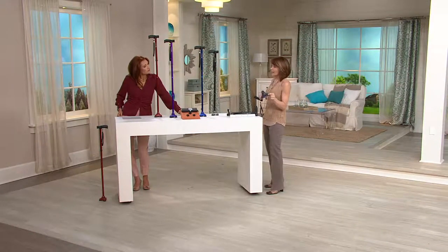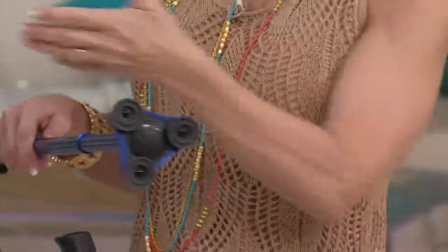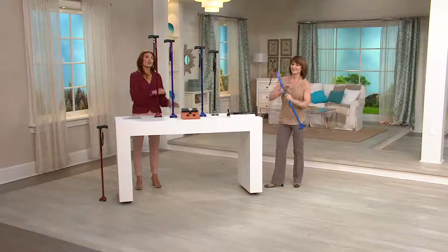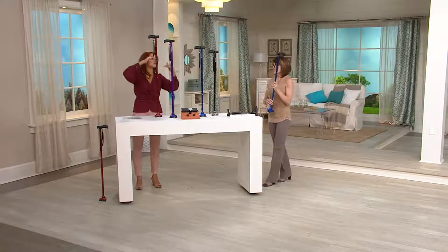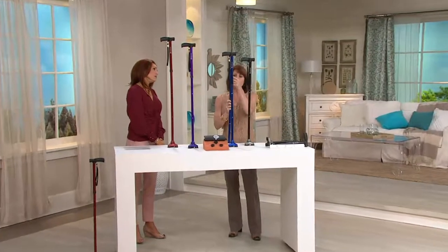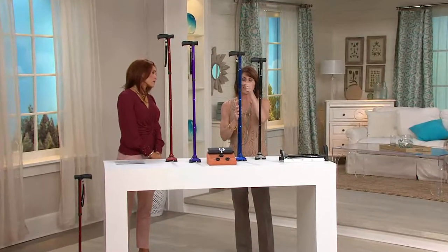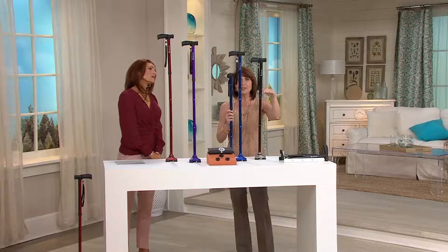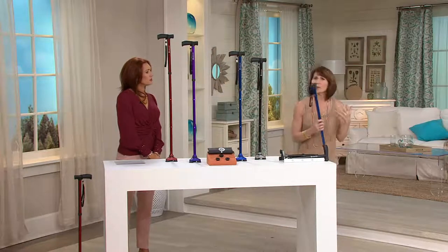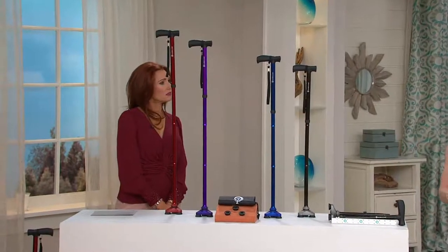These are like the tires of a car — they grip. They don't stick. It's just like wheels, and that's why we give you additional ones, because in time they tend to wear. We give you eight options for height adjustment using a simple push-pin — you slide and telescope it in. We give you from 30 and a half inches all the way up to 37 and a half inches, so if you're wondering what size you need, you have eight options.